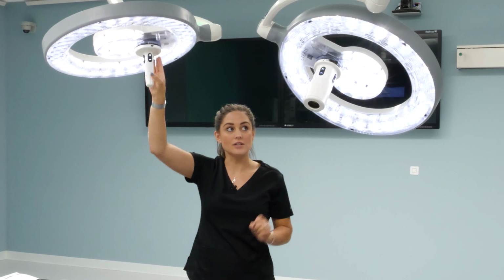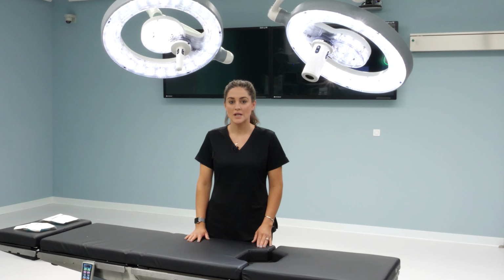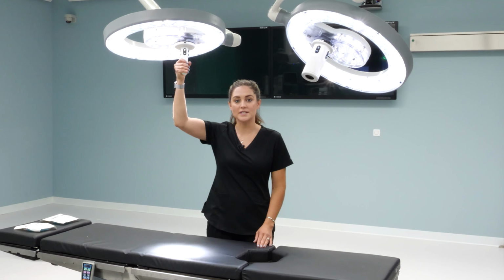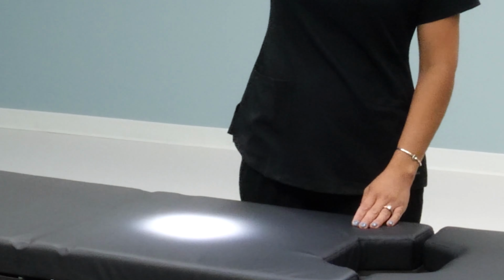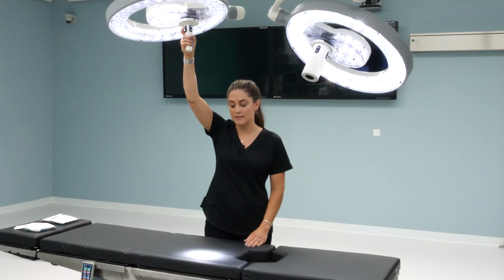The next thing on the sterile control, whether it's your in-light handle or your camera, is you can do a slight quarter turn of the light head to change your spot size or focus. As you may have noticed, the intensity automatically adjusted when I adjusted the spot size of the light. This is our auto intensity feature. Steris has sensors built in all the way around their light head to automatically adjust the light intensity as you go from a larger to a smaller spot, as well as raising and lowering the light.